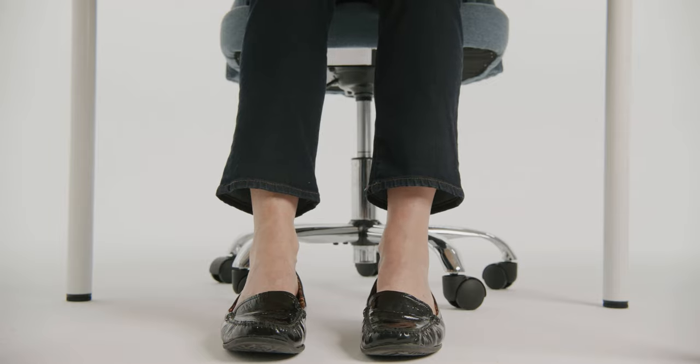After the cuff is on your arm, please take a few breaths to relax and keep your posture in mind. Keep your arm rested on the table at all times during the reading and try to keep your movements at a minimum.